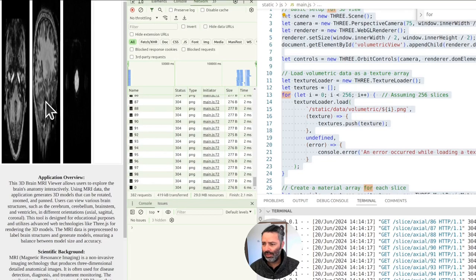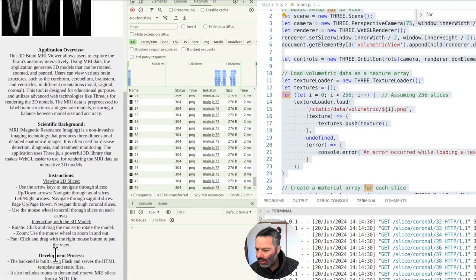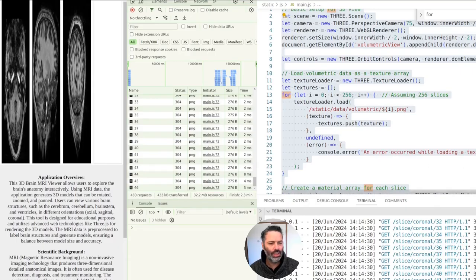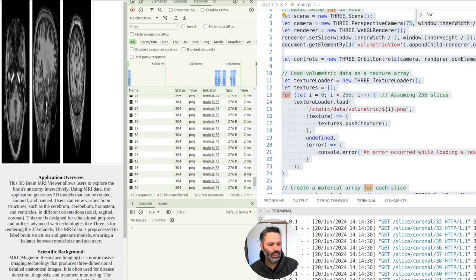It's not very handy because the keyboard shortcuts are also moving the window. We have page up and page down. The 3D model is meant to be an interactive thing. We're using a WebGL renderer and we have orbit controls so we should be able to zoom in and out, pan the scene, etc. Now it's actually having an issue loading the data.